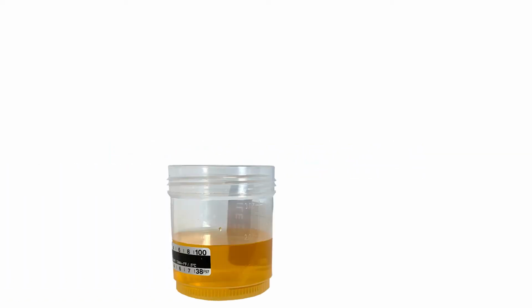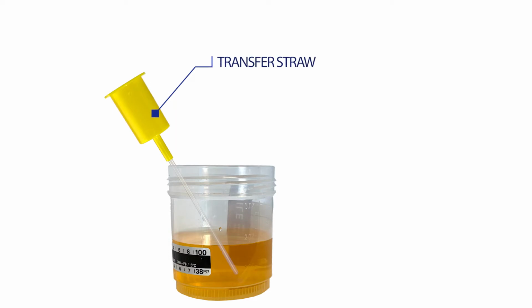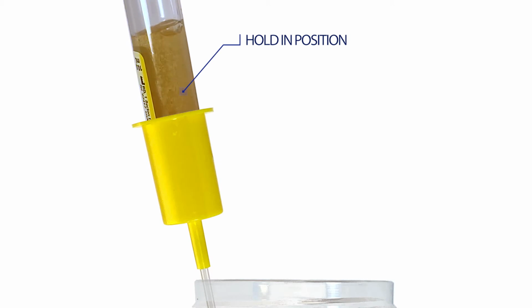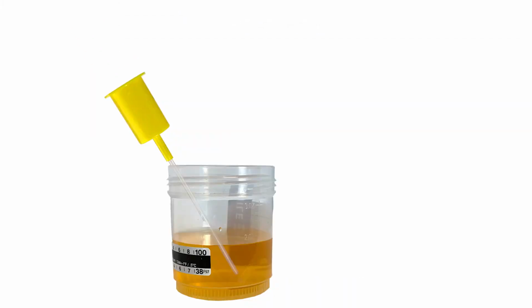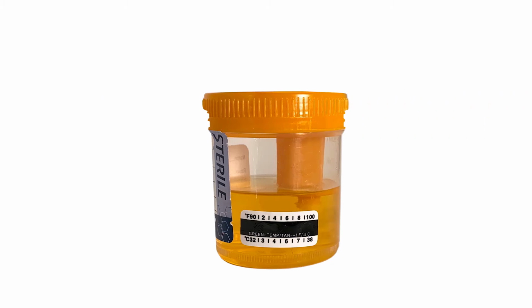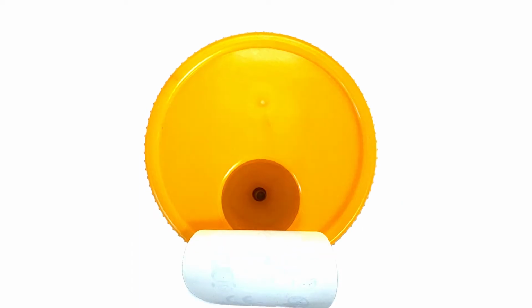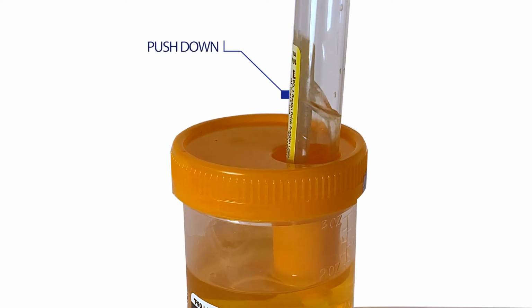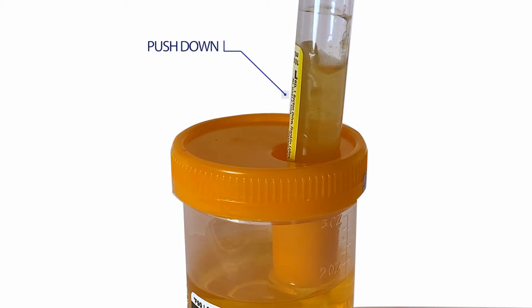If you are using a standard collection cup, insert the tip of the transfer straw into the urine specimen cup, making sure the tip is completely submerged. Push the vacutainer down and into the top of the transfer straw, holding it in position until the flow stops. Remove the vacutainer, leaving the straw in the cup. If you are using a port cup with the pin built into the lid of the collection cup, pull the sticker back from the lid, exposing the port opening. Push the vacutainer down and into the port opening, holding it in position until the flow stops. Remove the vacutainer.